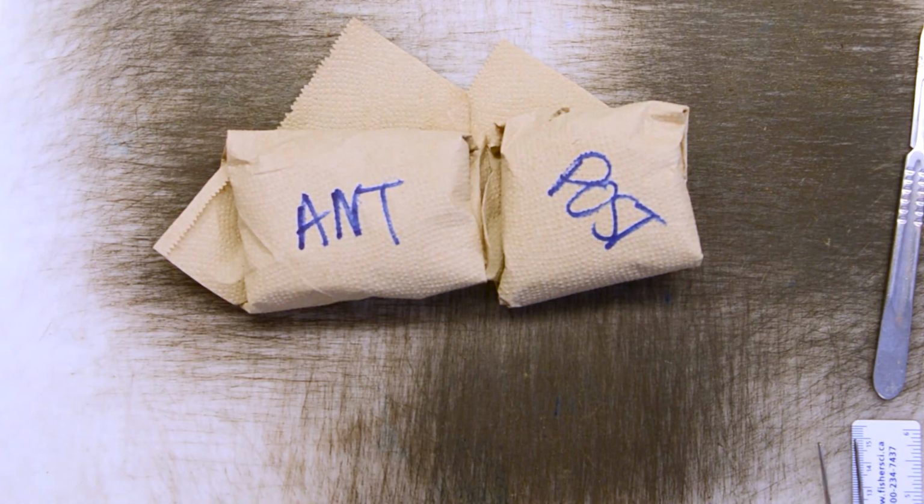That's all for our simple hysterectomy grossing tutorial. Make sure that you clean all of your instruments and submit your blocks appropriately.